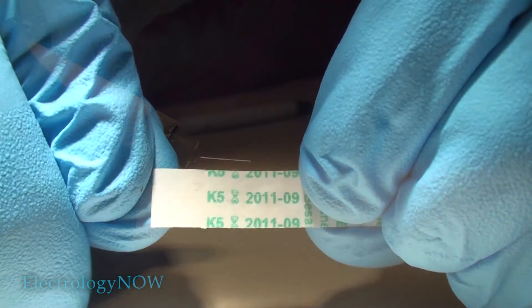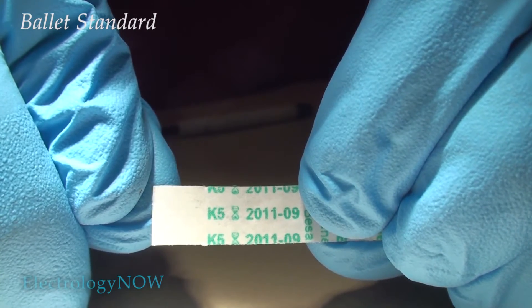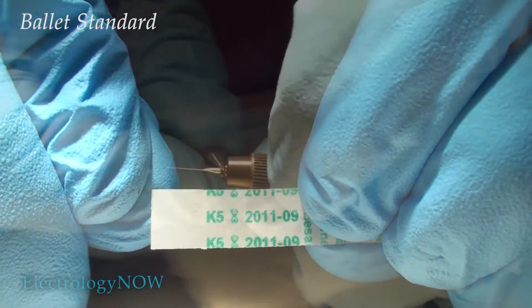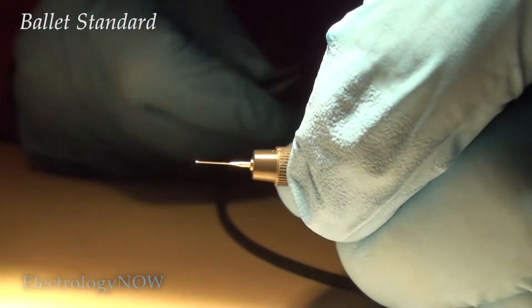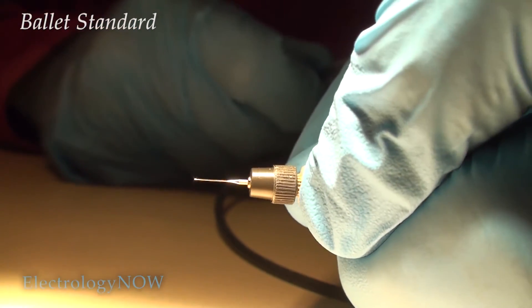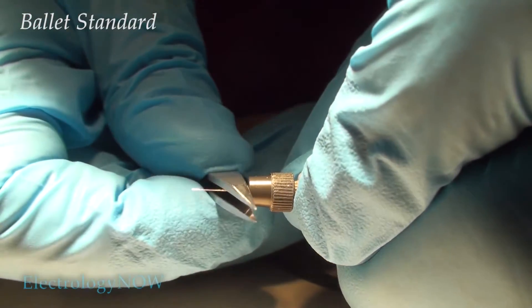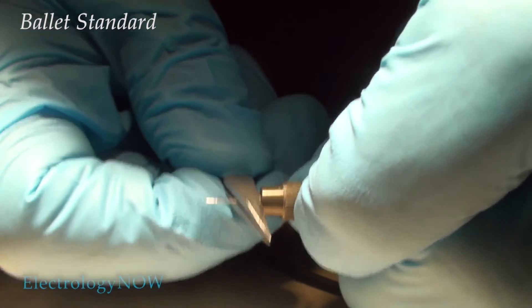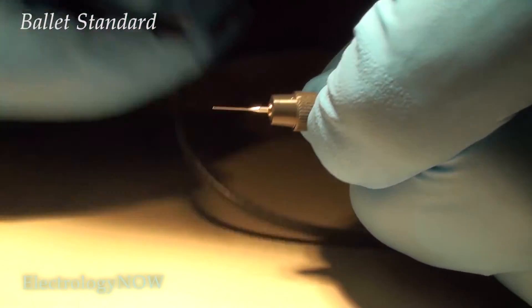Here's your standard Ballet K-Shank needle. This one's a size 5. Put your K or F-Shank in the needle holder and tighten it down. You'll notice that the shanks are too tough to bend, so in this case, go ahead and bend the blade.